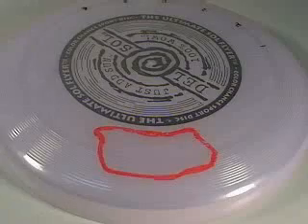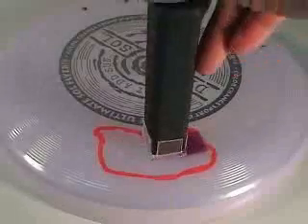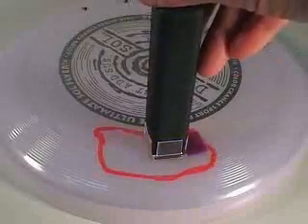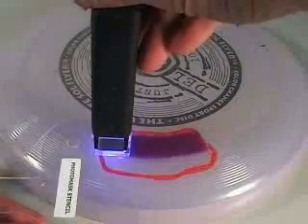For demonstration purposes, a plastic disc will be used. It changes color when exposed to UV light. A lesion representing typical elbow or knee disease is outlined in red. Dual-light targeted phototherapy involves placing the disposable handpiece tip directly on the skin and stepping on the foot switch. The desired dose of UV light is delivered in a matter of seconds.